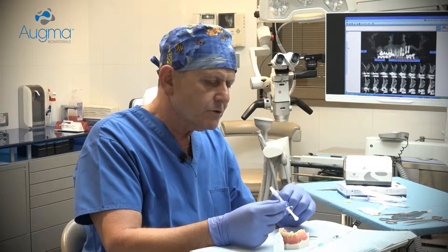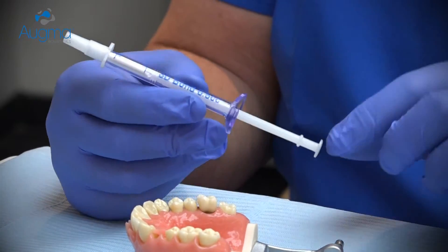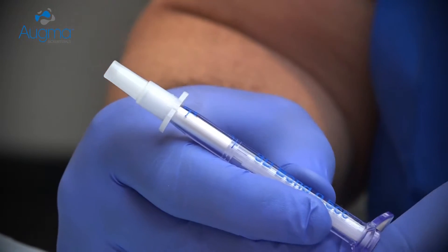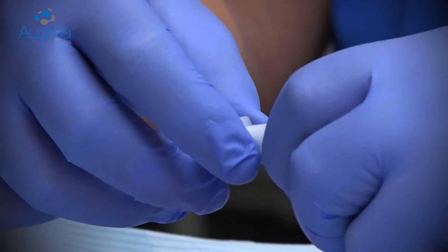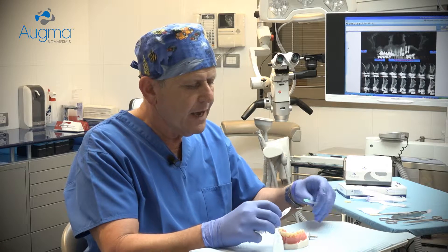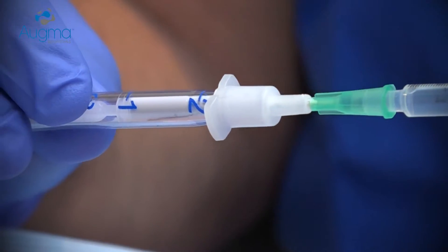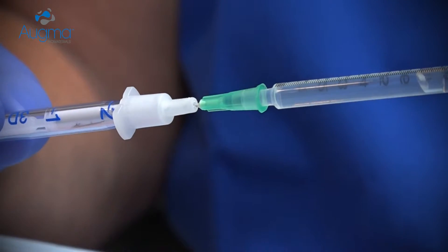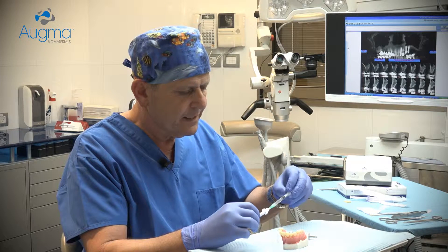This is the 3D-Bond driver. It contains a powder, two indicating lines — number one and number two — a shaft, driver head, and a cap. First, push the shaft until it reaches line number one. Remove the small cap from the syringe and insert the needle all the way down into the driver. Then withdraw about one millimeter in order to enable the liquid surplus to spill out, and start ejecting the saline inside the driver.